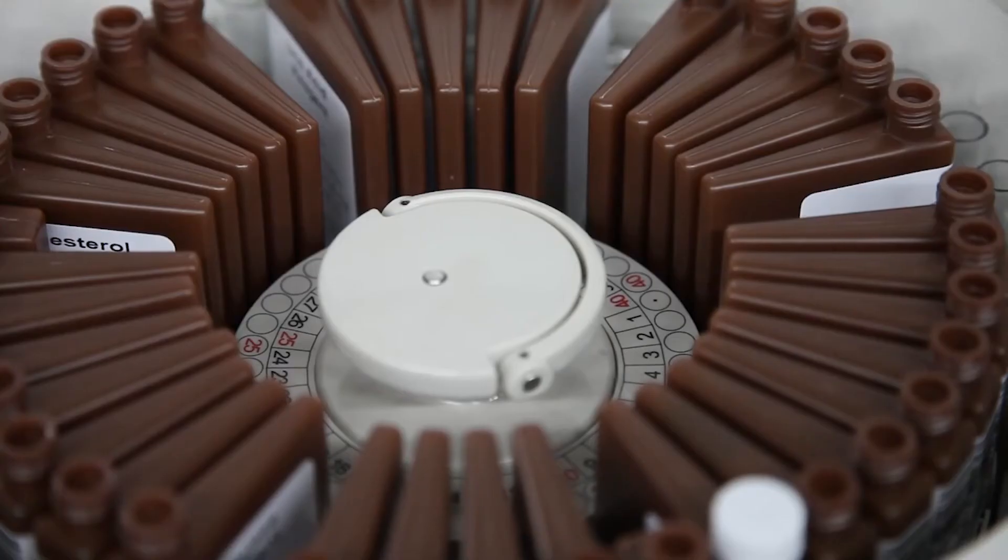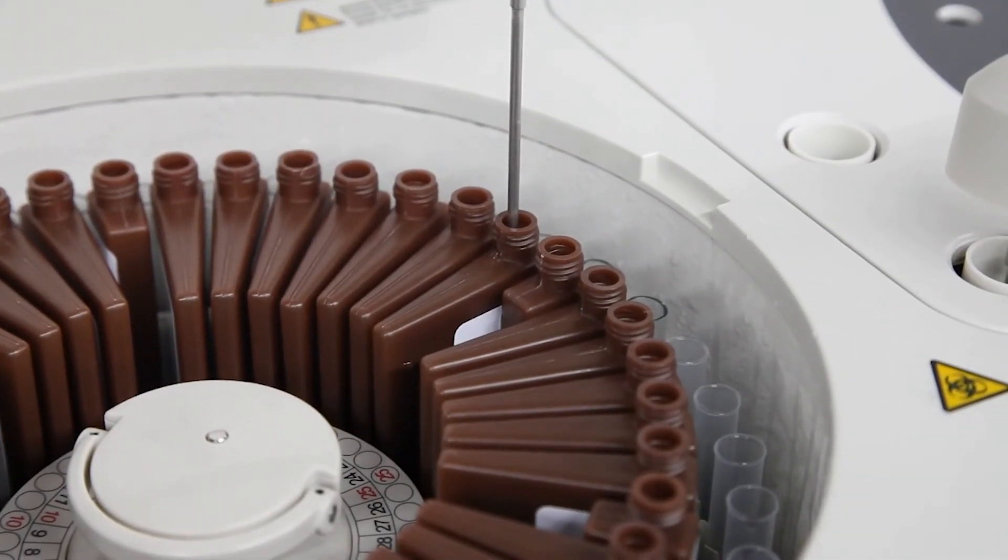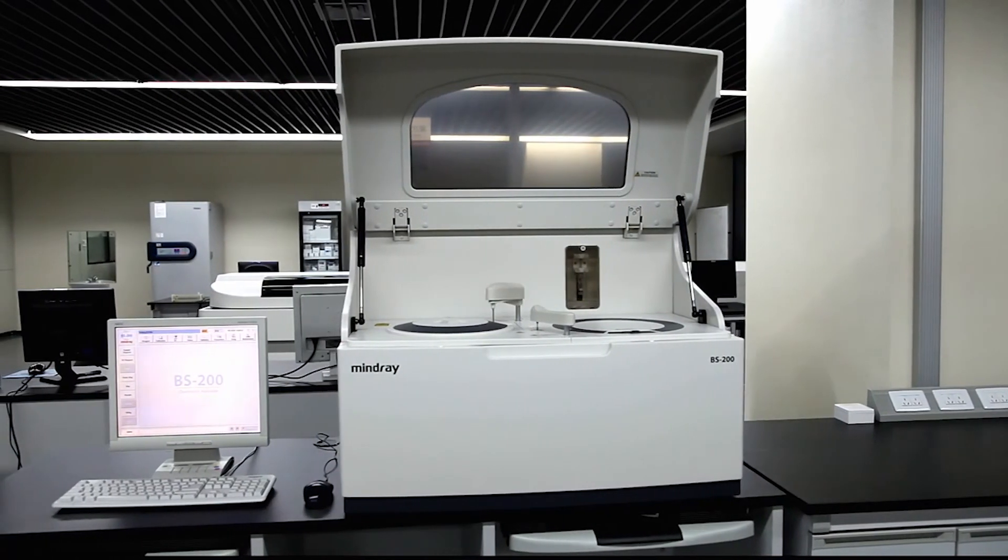The BS200 analyzer consolidates workflow by processing both chemistries and drugs of abuse on a single system, making the BS200 the preferred choice for achieving efficiency and profitability goals.